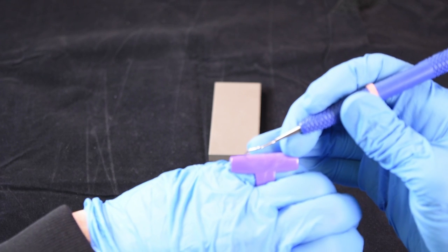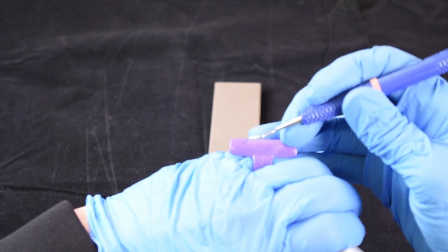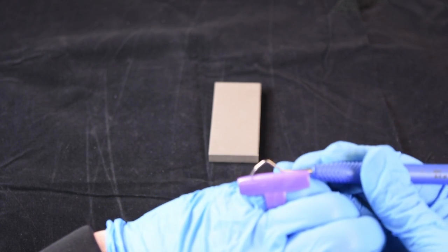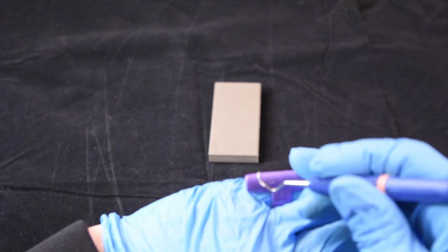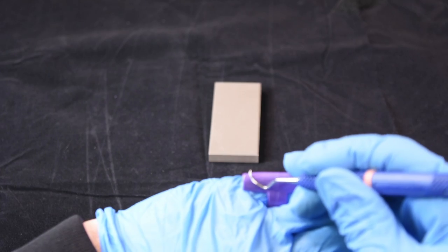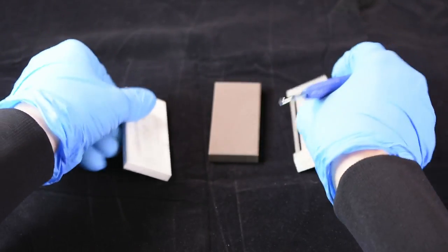We'll check the sharpness, hear the ping, you know it's nice and sharp, and ready to go.